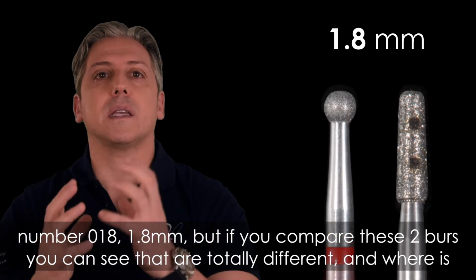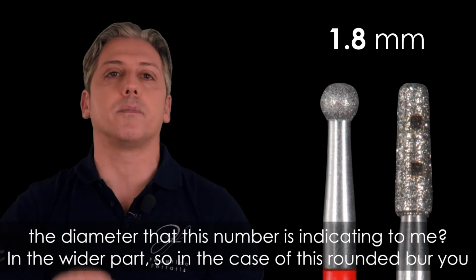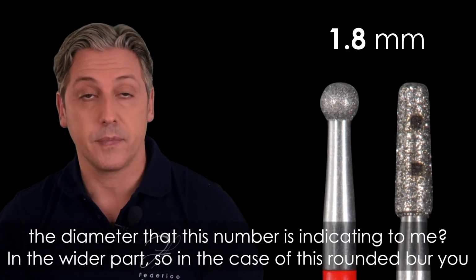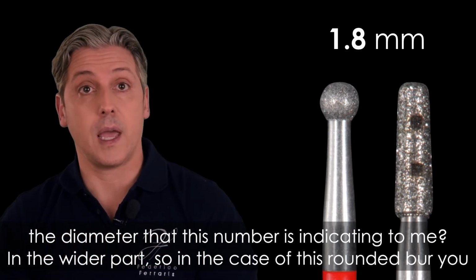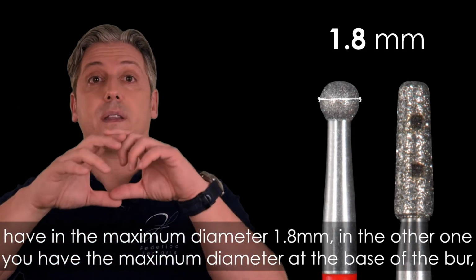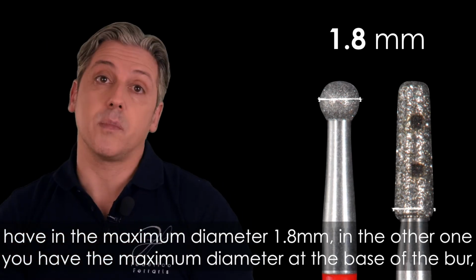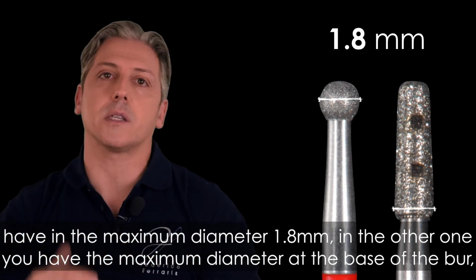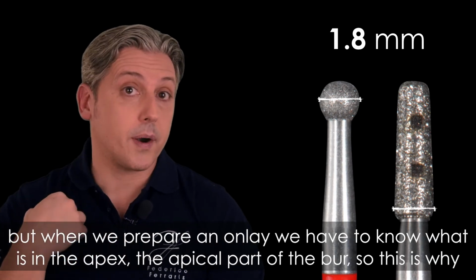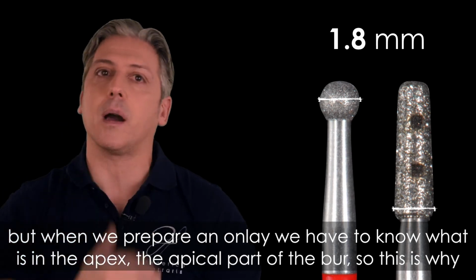And where is the diameter that this number indicates to me? In the wider part, okay? So in the case of this round burr, you have in the maximum diameter 1.8 millimeter. In the other one, you have the maximum diameter at the base of the burr. But when we prepare an onlay, we have to know what is in the apex, the apical part of the burr.